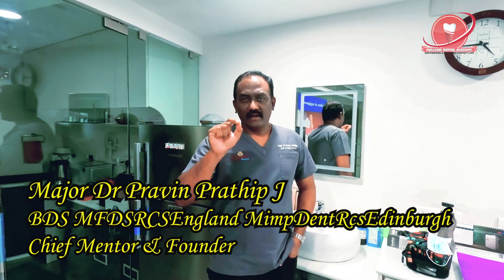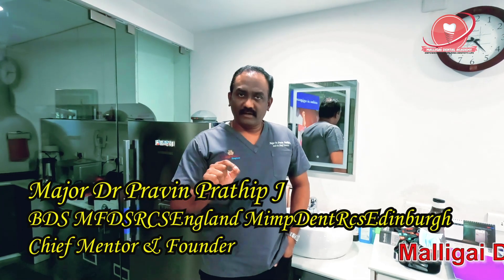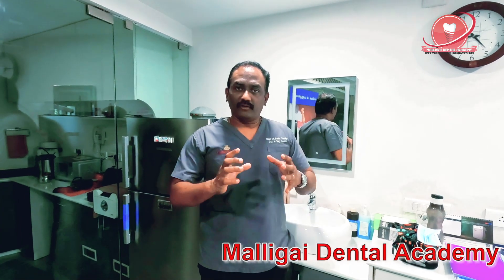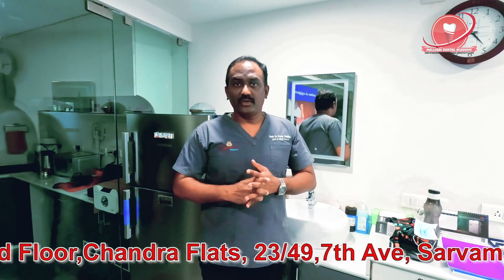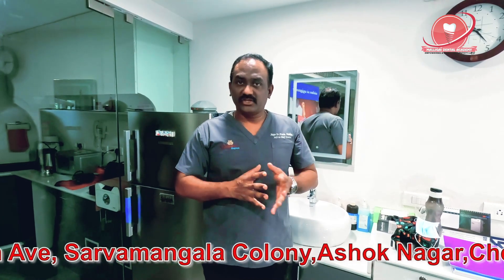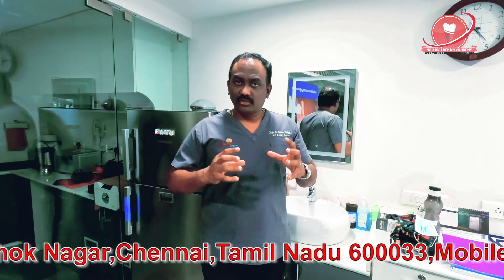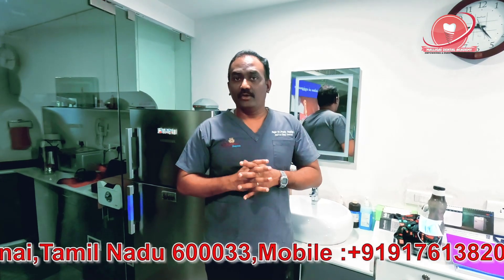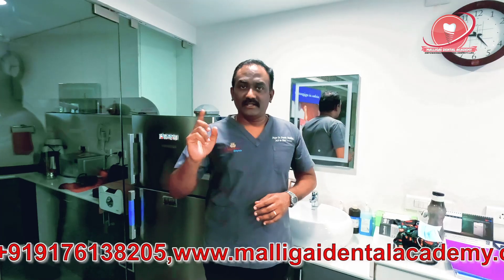Many of my friends are in the UK and they have to set it up at home. When I saw the website there was a beautiful option where a practitioner can use it on their dental chair without having to purchase a separate unit. I have selected my clinic dental chair itself. I am going to show you how to mount it onto the chair, how to put the drainage, and everything. Let's go into the video.